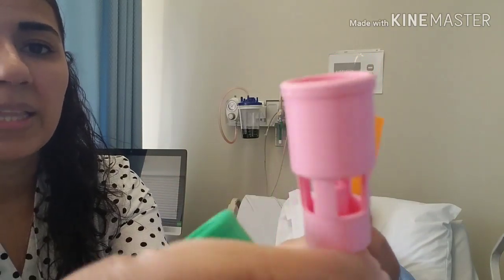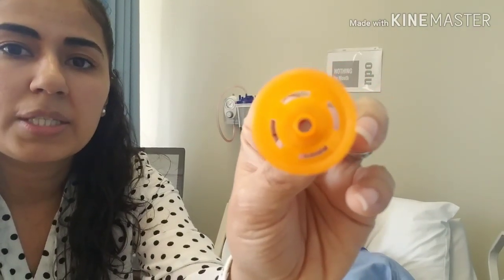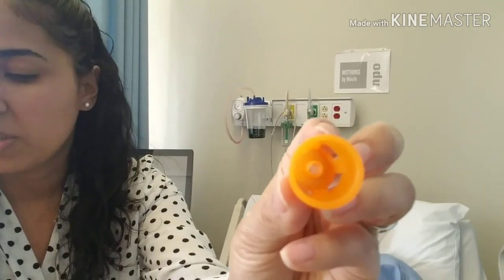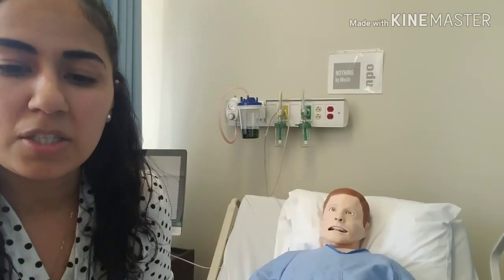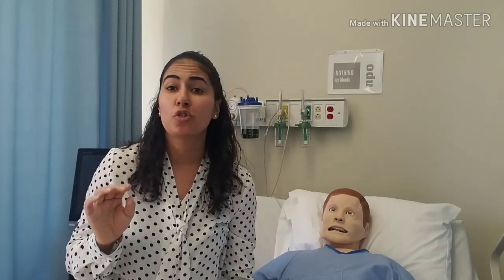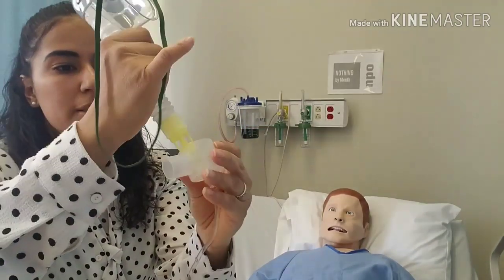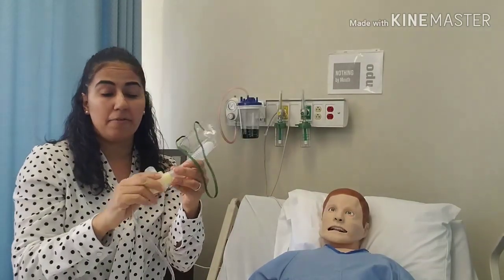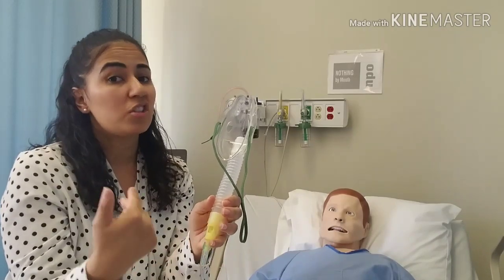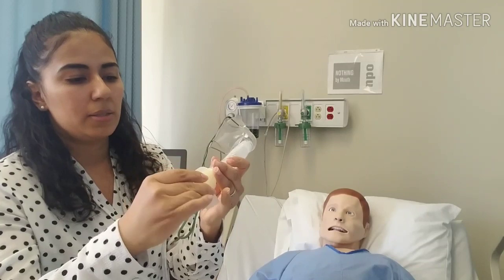A tip for remembering this is a Venturi mask: it has these little vents. With those vents they regulate how much oxygen is delivered — each adapter has a different-sized hole inside. If you compare the orange 50% adapter to the 31% adapter, you can see the hole size is very different. Also critical — this plastic outer adapter must be applied. If the patient's gown or clothing obstructs the vents, it won't deliver the specific percentage of oxygen you intended.